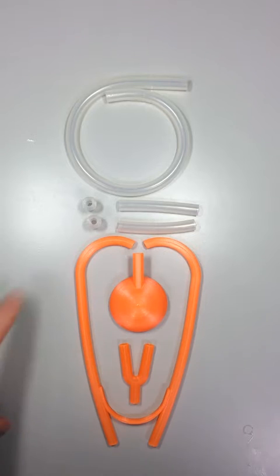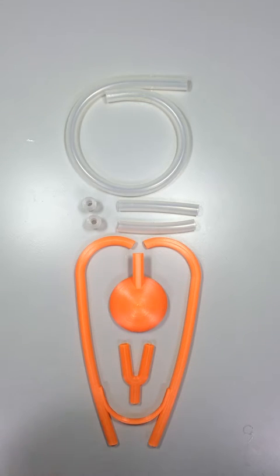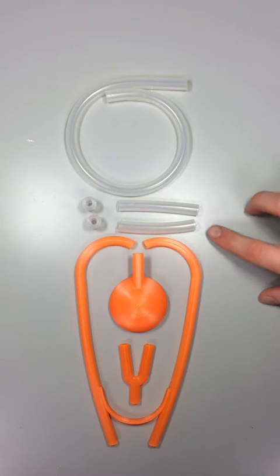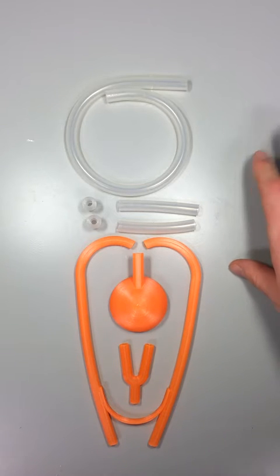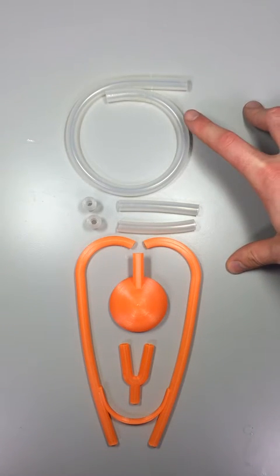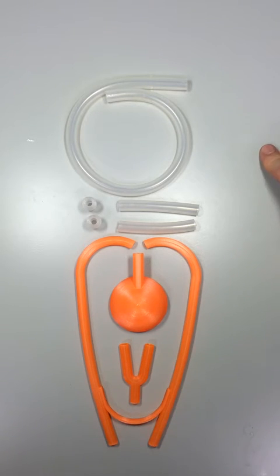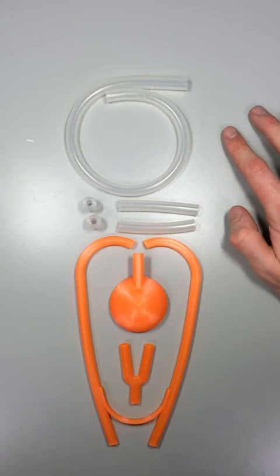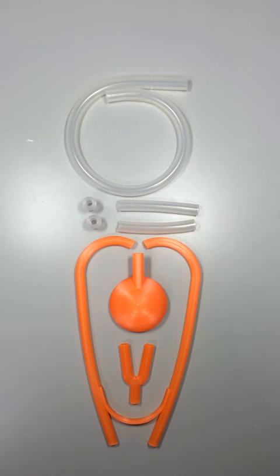Added on to that, you'll need to have made the silicone earbuds, and also you'll need a couple of lengths of tubing — two lengths at about 60 or 70 millimeters, and then a longer tube of 360 or 370 millimeters. These tubes are silicone, but you can use rubber or PVC if you want to.